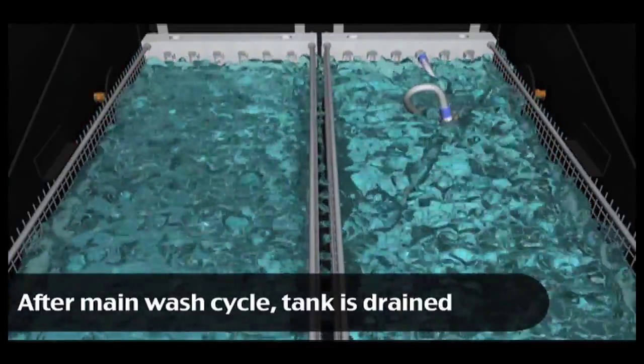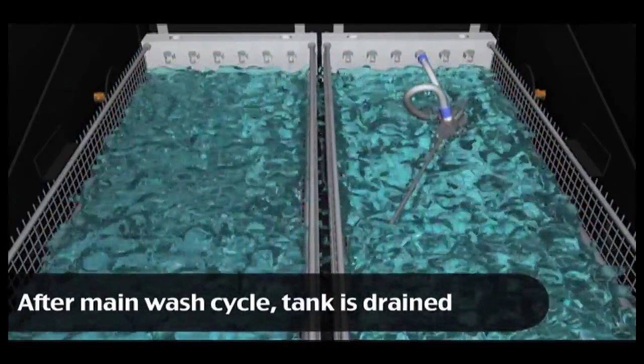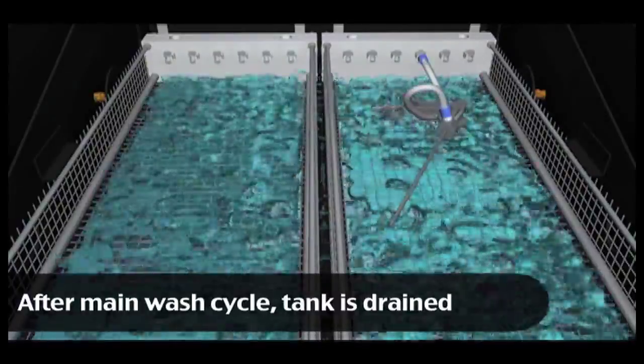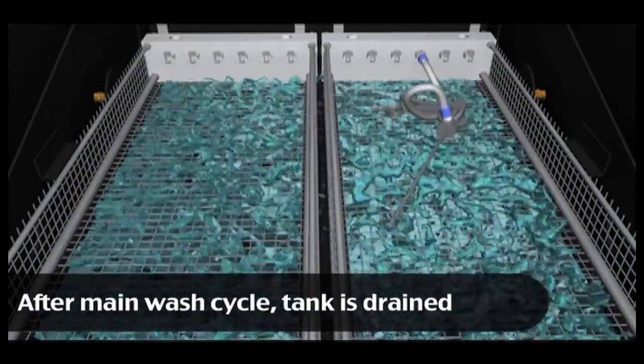This process is repeated twice more. The tank is drained to remove all the discarded bio burden. Once the solution is drained, the surgical instruments are rinsed externally and internally with 190 degree water.